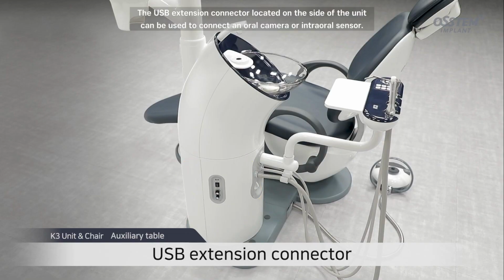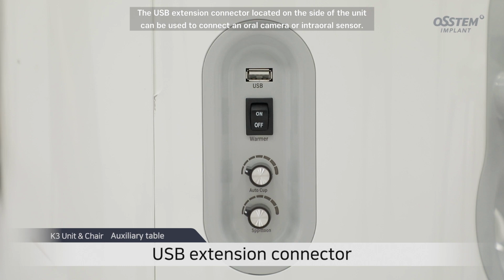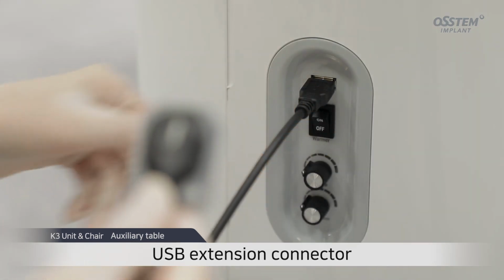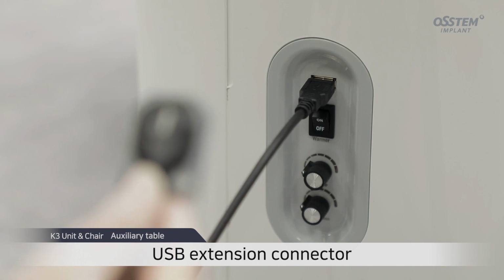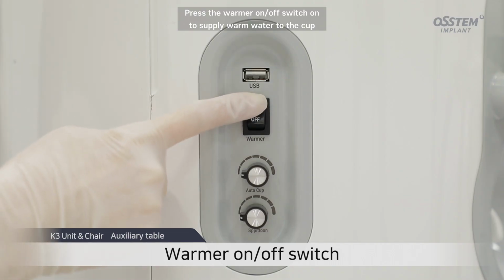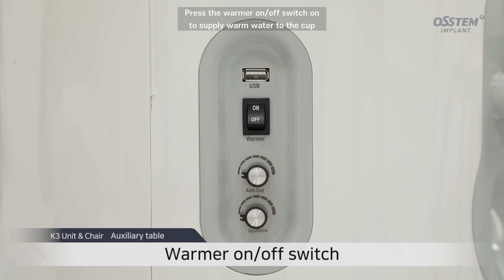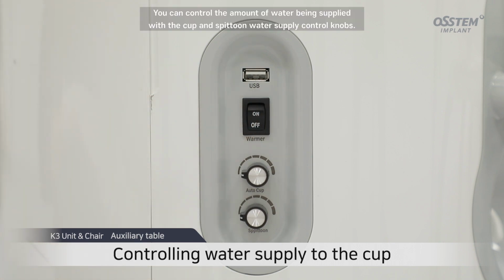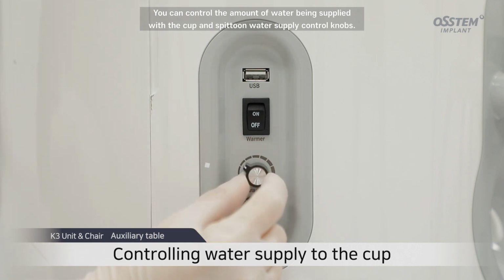The USB extension connector located on the side of the unit can be used to connect an oral camera or intraoral sensor. Press the warmer on-off switch on to supply warm water to the cup, and press off to stop the supply of warm water.